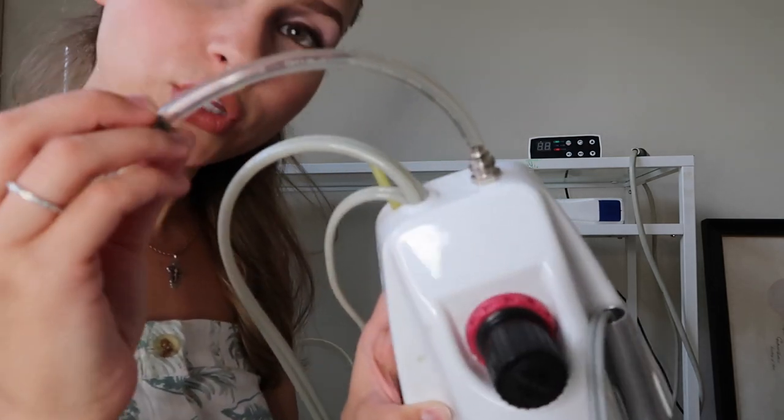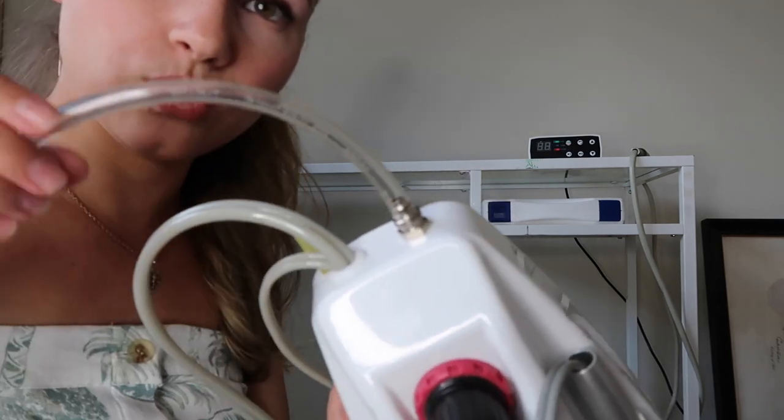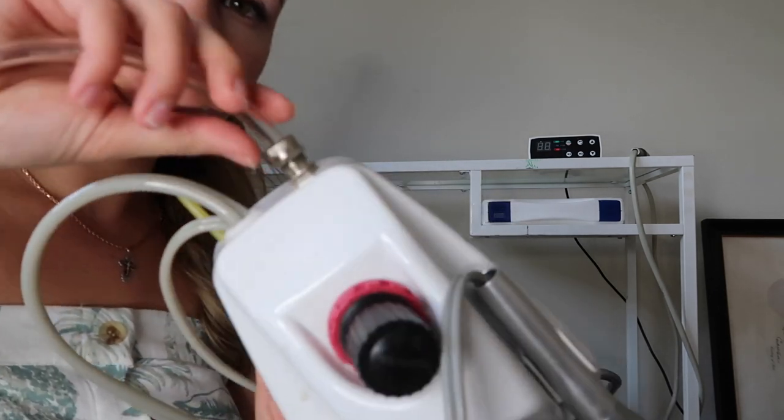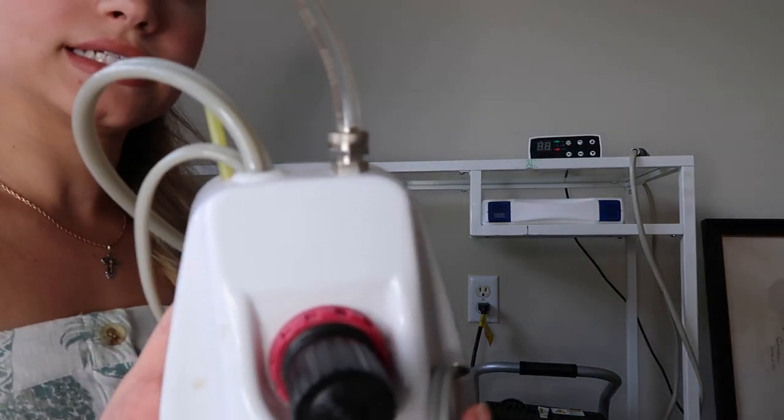After this is done, you put this bolt on this tube like so. On the other end of the tube, you push it all the way in and screw it right in. There you go — this side is connected now.